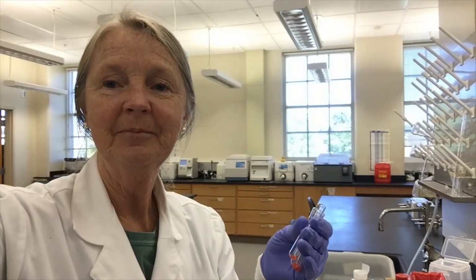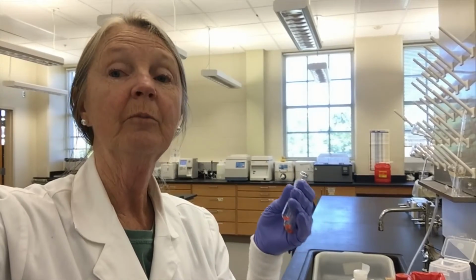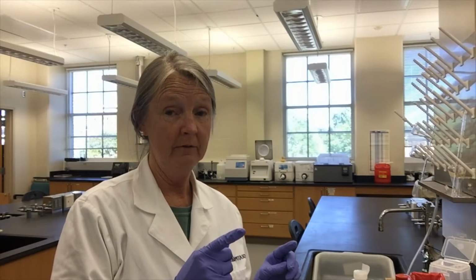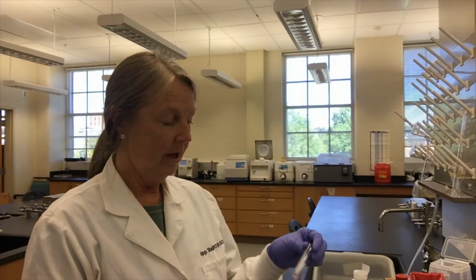fetal maternal bleed. So I'm going to spin these. I'm going to wash them 4 times and then spin them down and have that dry cell button and add my indicator cells. So we know that what we want to do is quantitate the amount of any of baby's cells that are RH positive that have crossed over during delivery into the mother's blood system. So now, and this is one way to do that, okay? Another way that we do that is Kleihauer-Betke, which is an acid elution test.